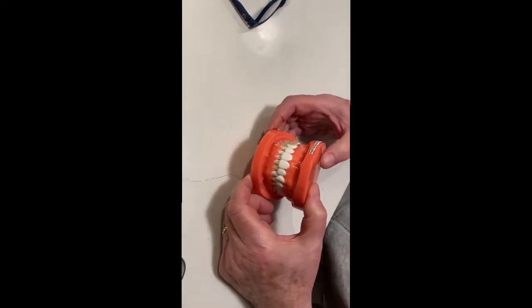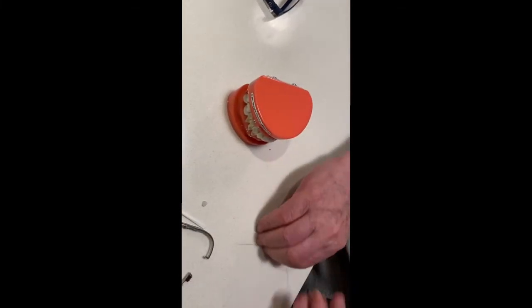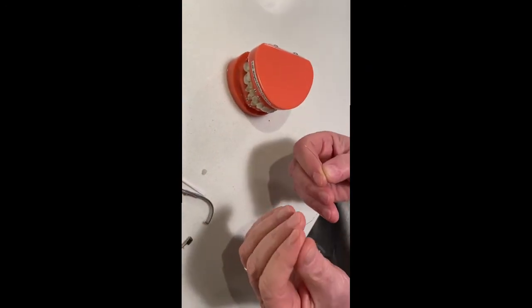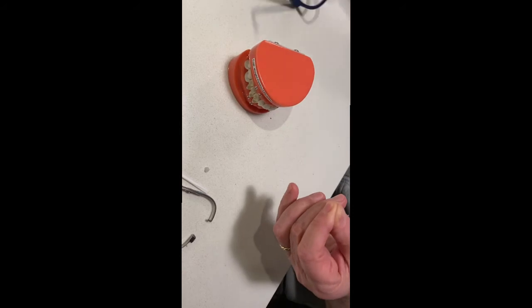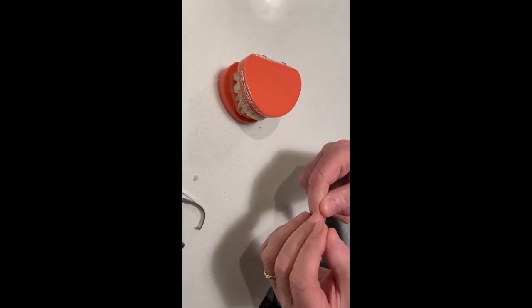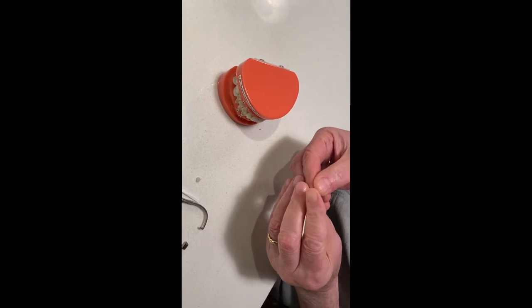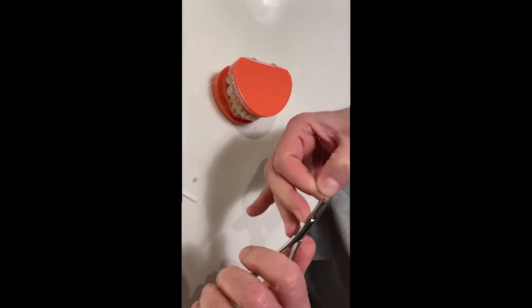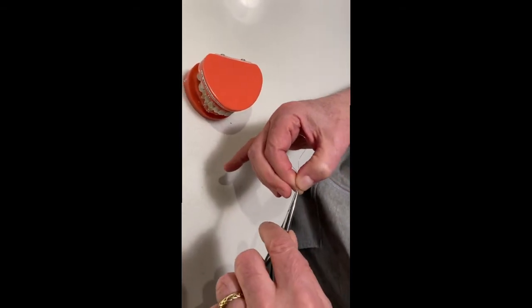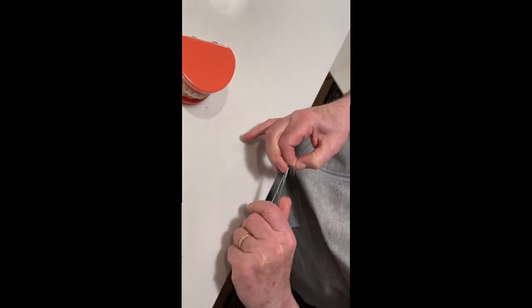You're going to now place the wire. You start with a piece that's about six inches long. You fold it in half. You bring the ends together. With your twisting instrument, you make a nice, tight tail with about 20 turns. And this is the piece.